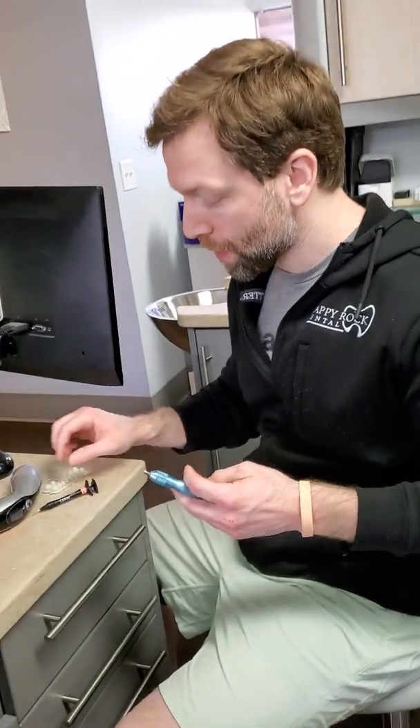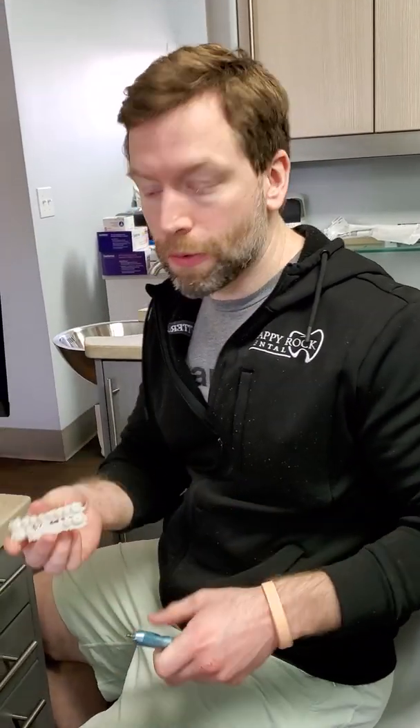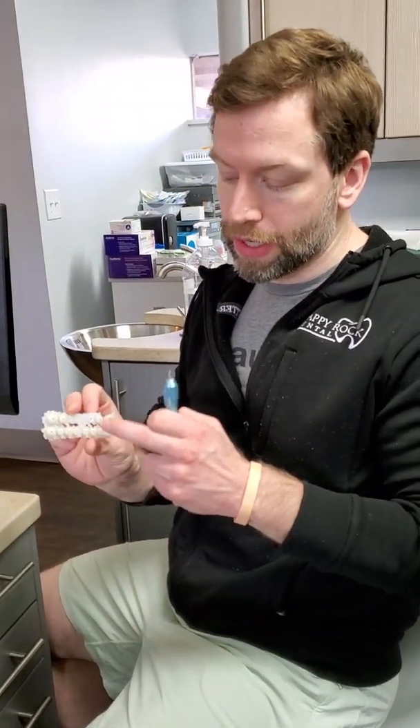Most users, all they're going to do is have a bunch of these sitting around. They could be removed from what I call a card of them — you could have them removed, just have a bunch of them. Or you could have a card with a bunch of the same one, the same premolar, same molar. Or this is an assorted one with various different sizes.